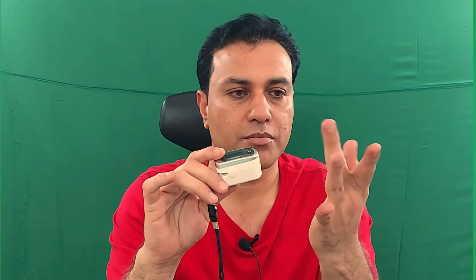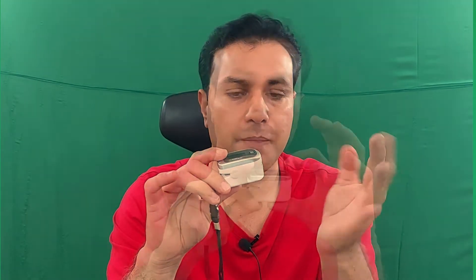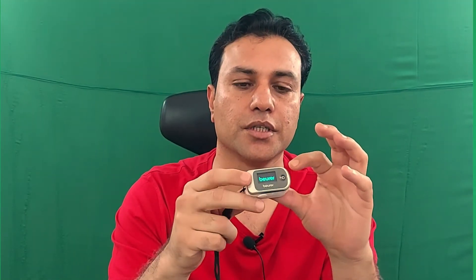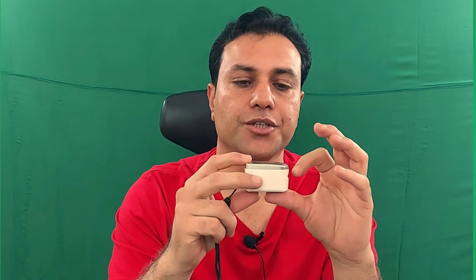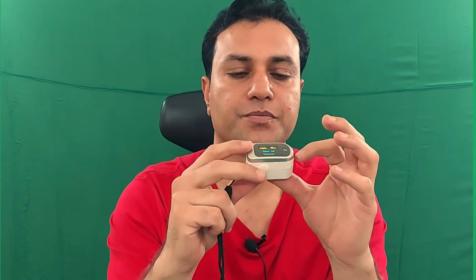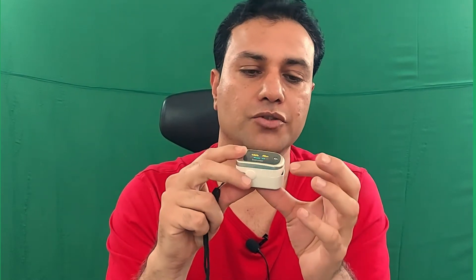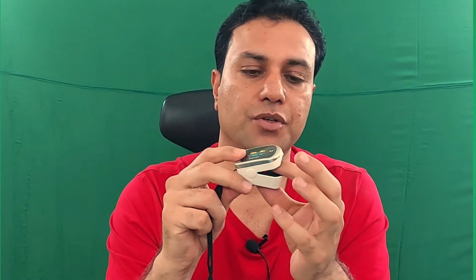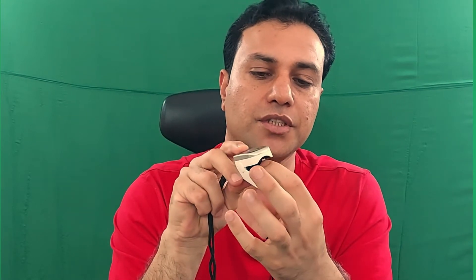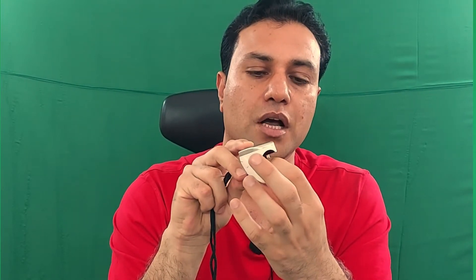The most suitable finger is the middle finger. Now let me turn it on. As you can see here, once it turns on, you will keep your finger inside between the red lights emitting from the emitter.